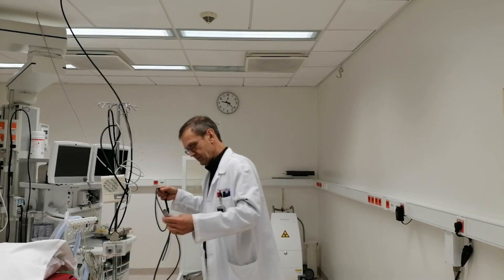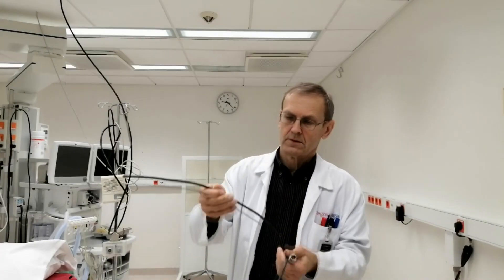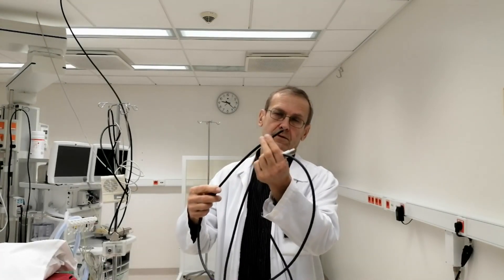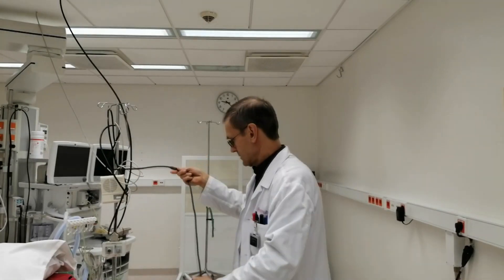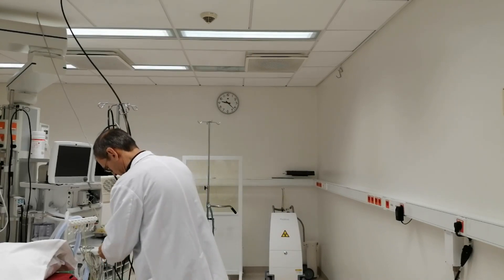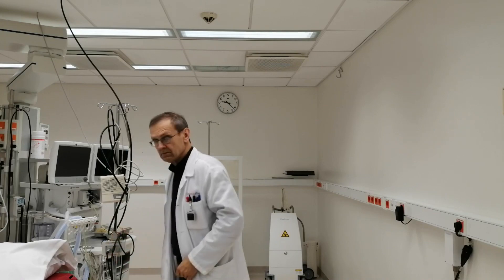The length of this probe is 2.5 meters and 5 diodes are located in this part. The system is fixed not in the wall but on a separate stand to be at the center of the room. Today I will show you the adaptation of this system to the magnetic resonance imaging technique.